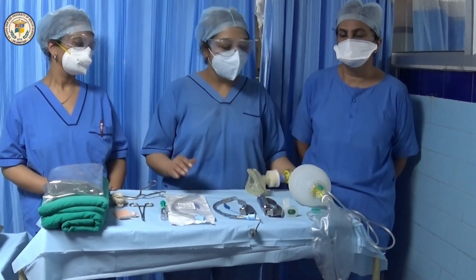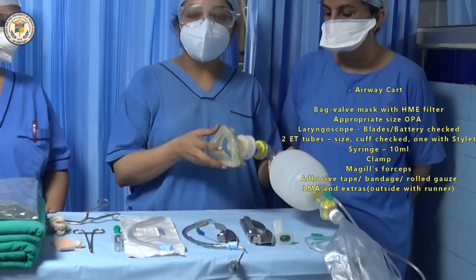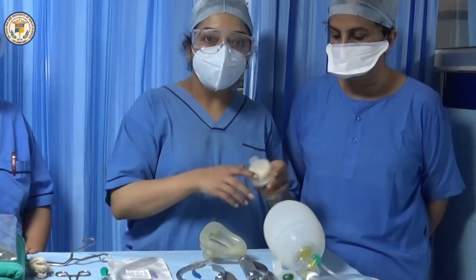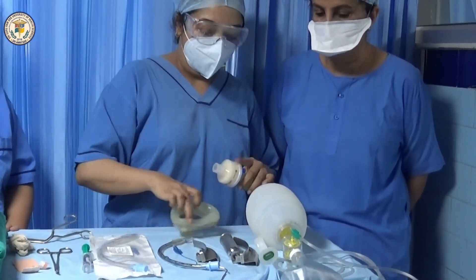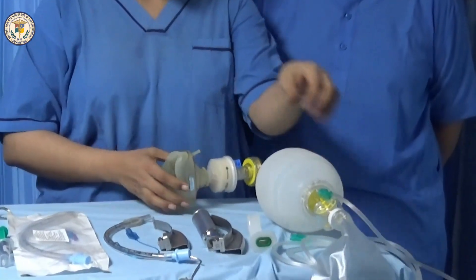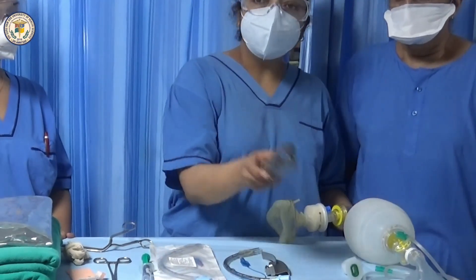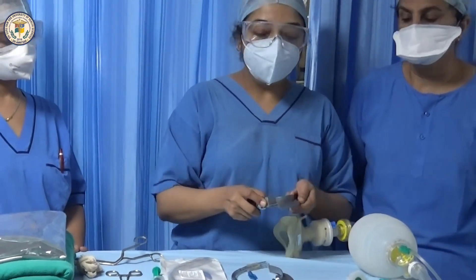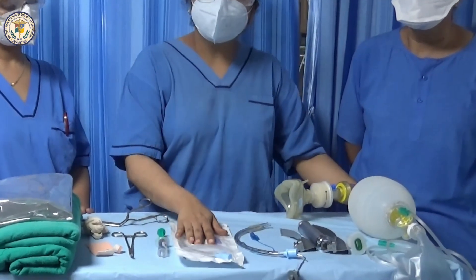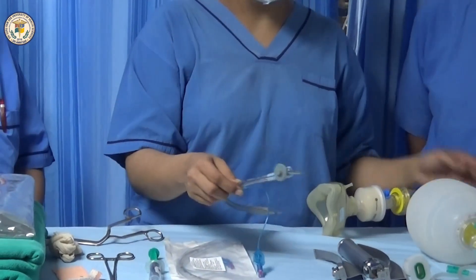Prepare the airway cart, which essentially contains a bag valve mask assembly. An HME filter is inserted between the bag and mask. Oxygen tubing is attached. An appropriate sized oropharyngeal airway, a working laryngoscope and a choice of blade, two endotracheal tubes of appropriate size with cuff checked, and one with a stylet inserted.